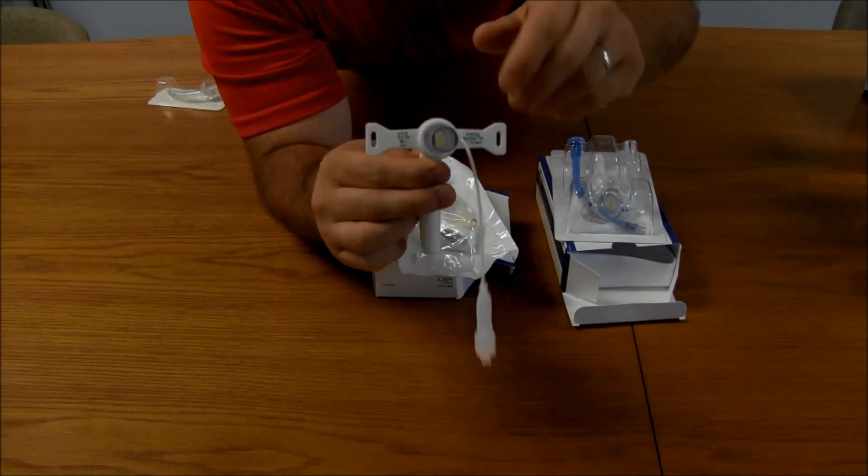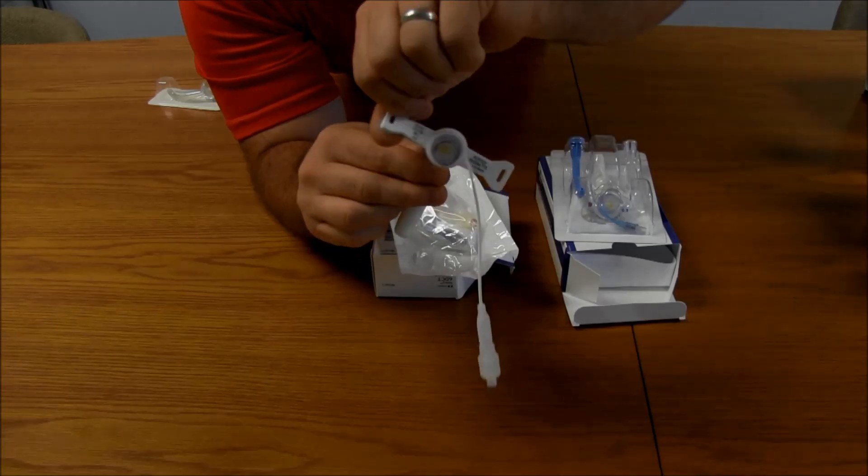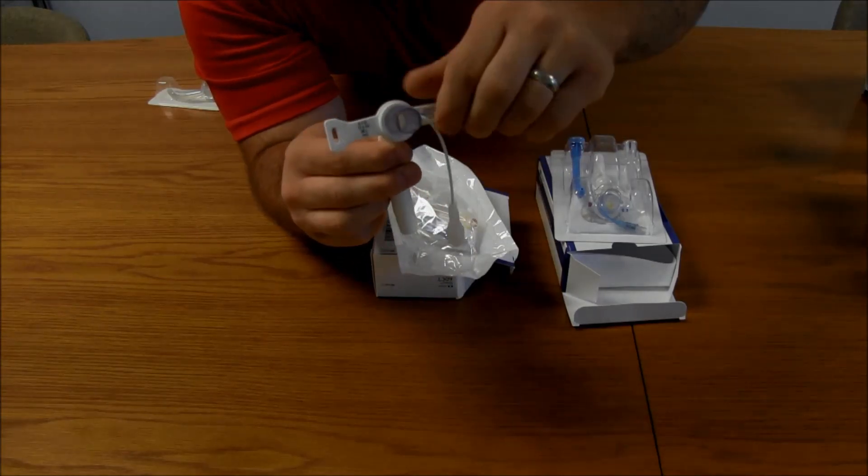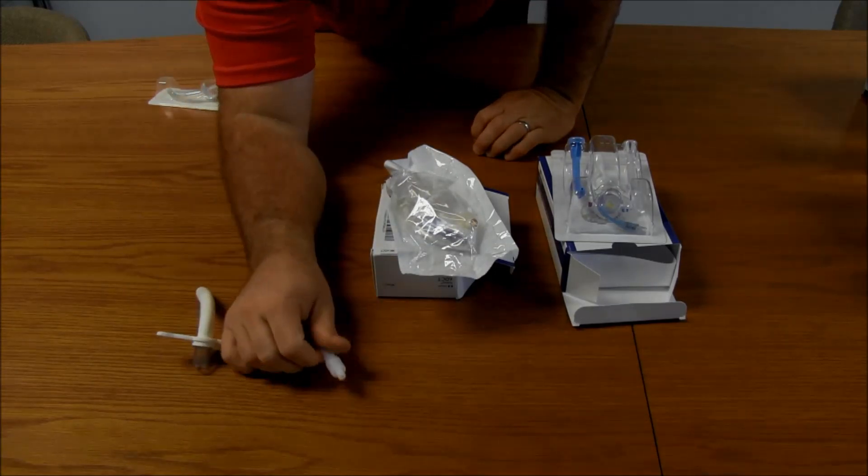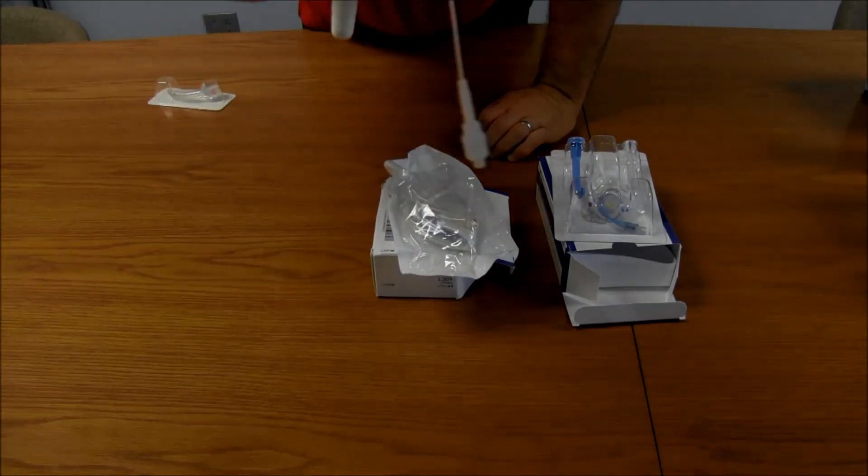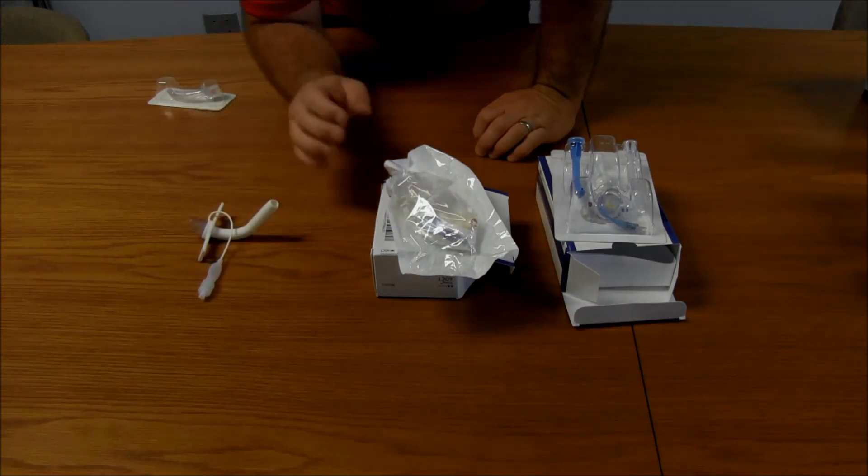One nice thing about these, obviously, is the real soft flanges right here. So, decreased breakdown. And then also we have the water cuff.